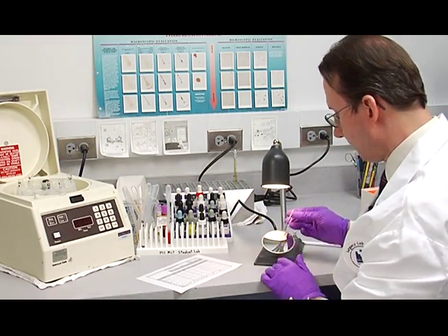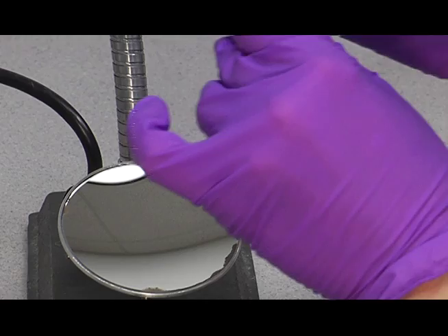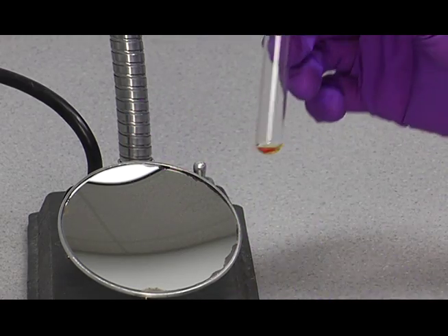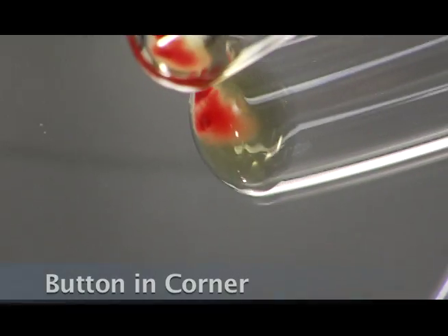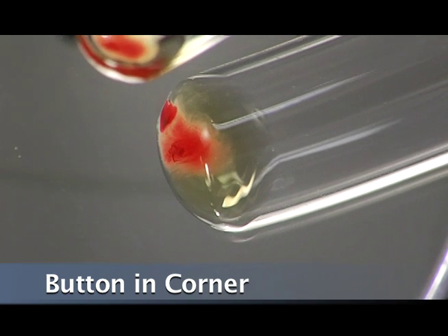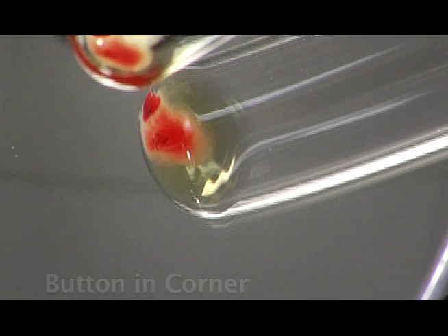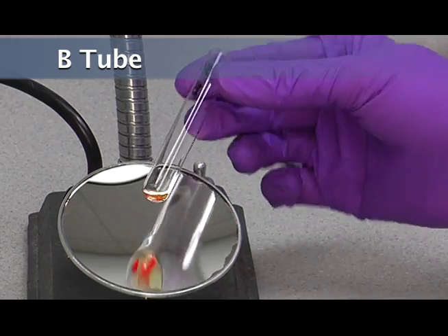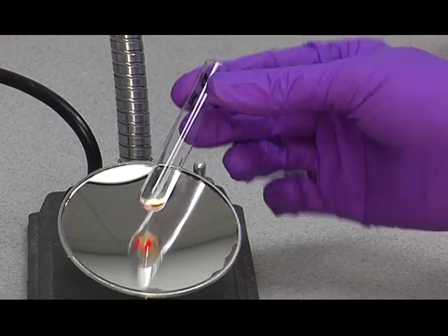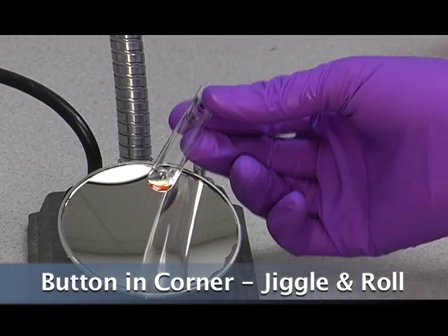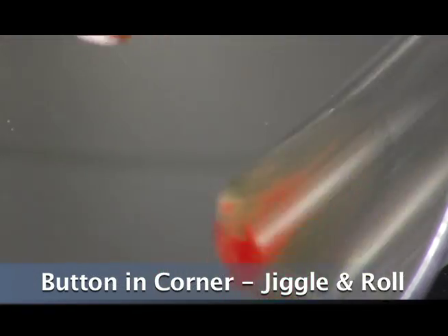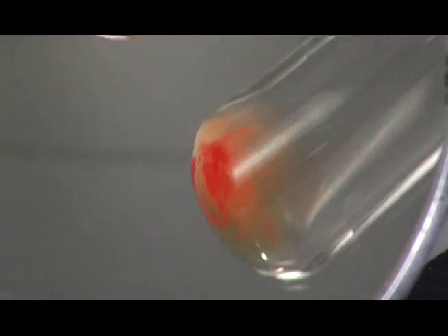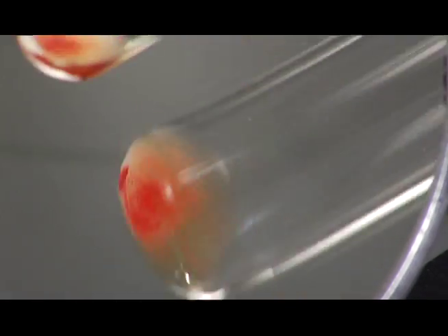We're going to show you the second one, a slightly different technique. In this one, you're going to have the button just up into the corner a little bit, like this. Then give it a jiggle and a roll. You can see the cells starting to stream off the button here.